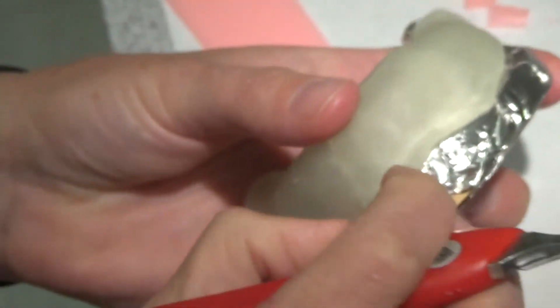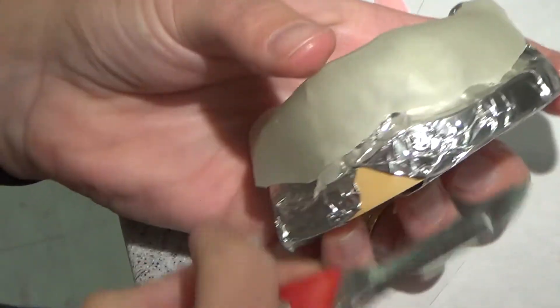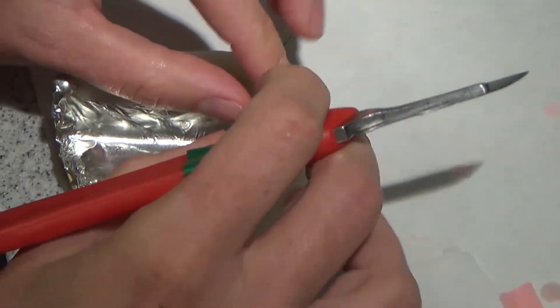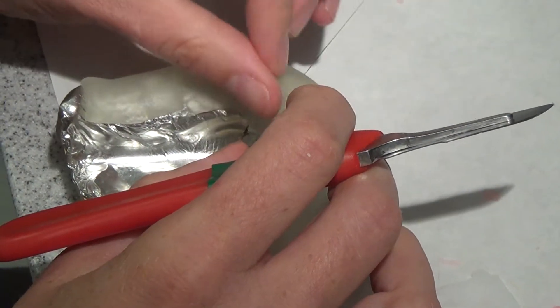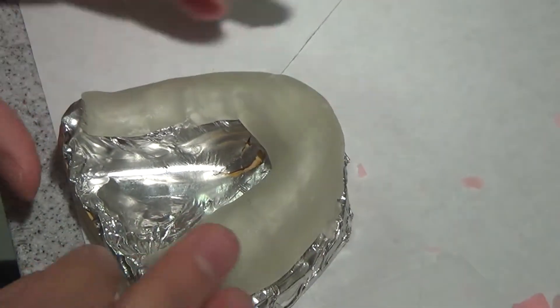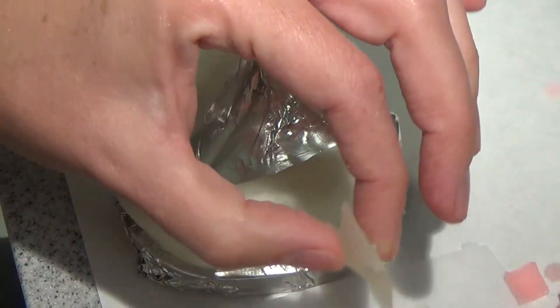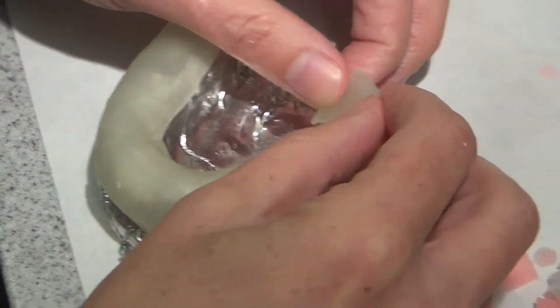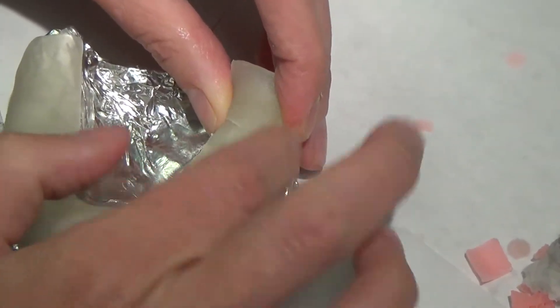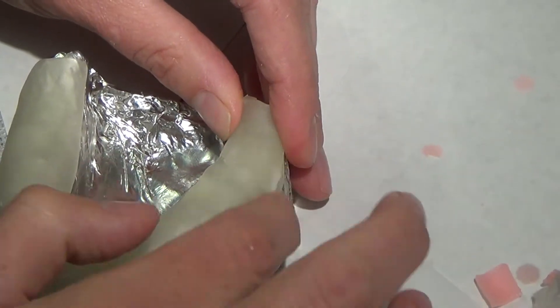So if I don't have to open a new pack, I won't. Sometimes you'll get all of your tray done and you just don't have enough for one handle. And if you would have trimmed a little bit more, you might have it. So I'm a little bit short on this retromolar pad. That's something I usually don't like to do. I like to cover that for sure in the beginning, not really an area I want repaired. I don't want the distal extension of this tray to be added on.